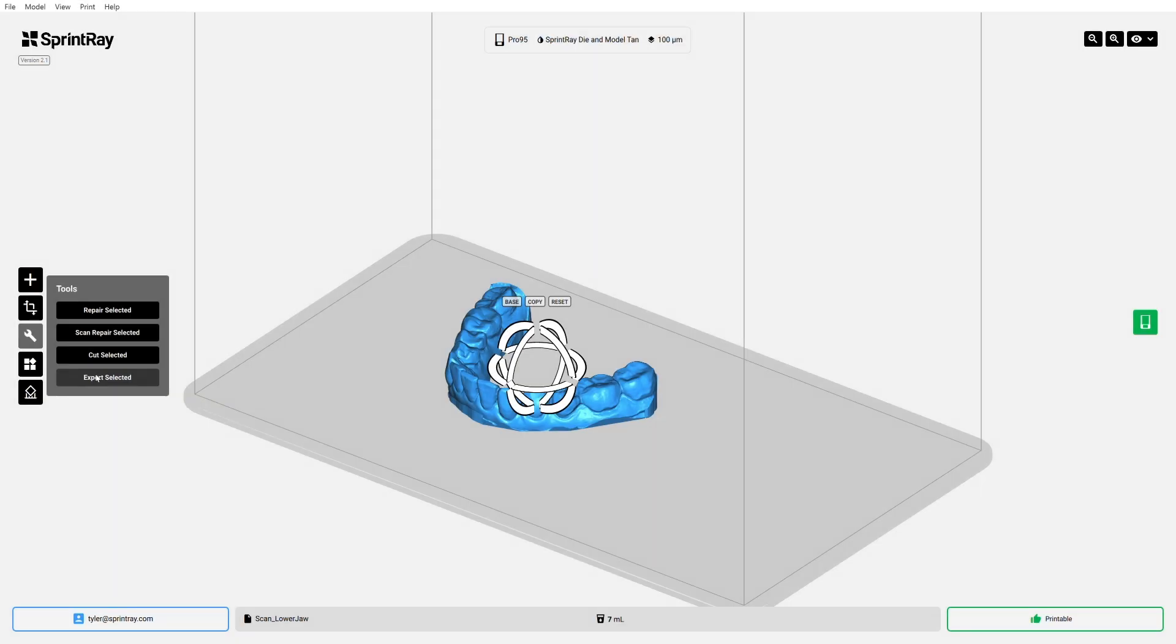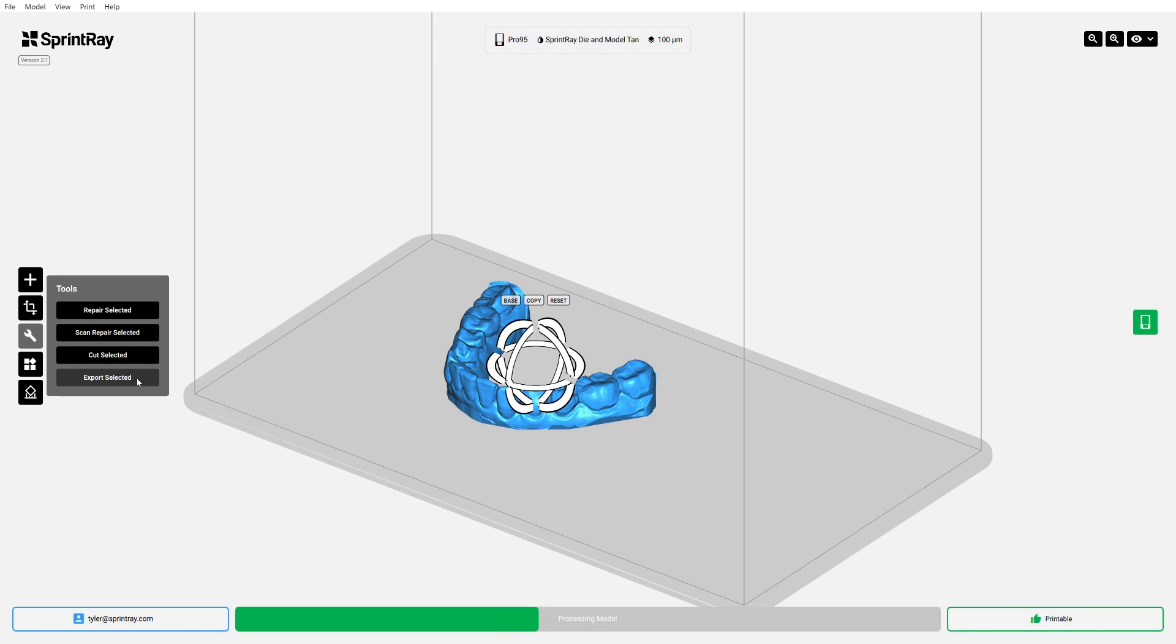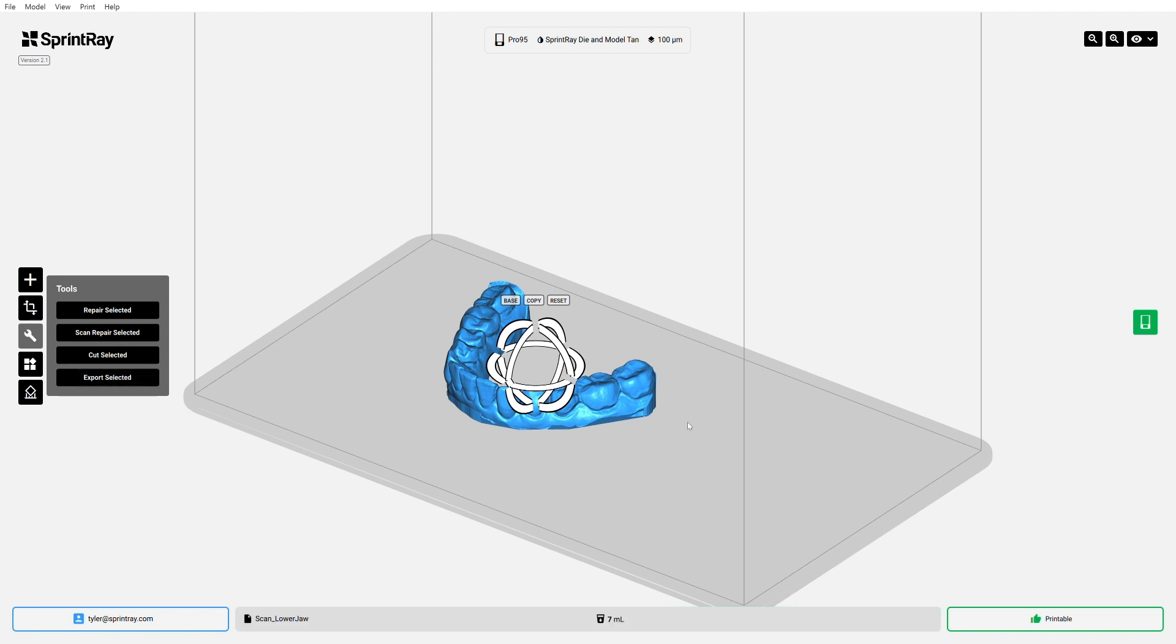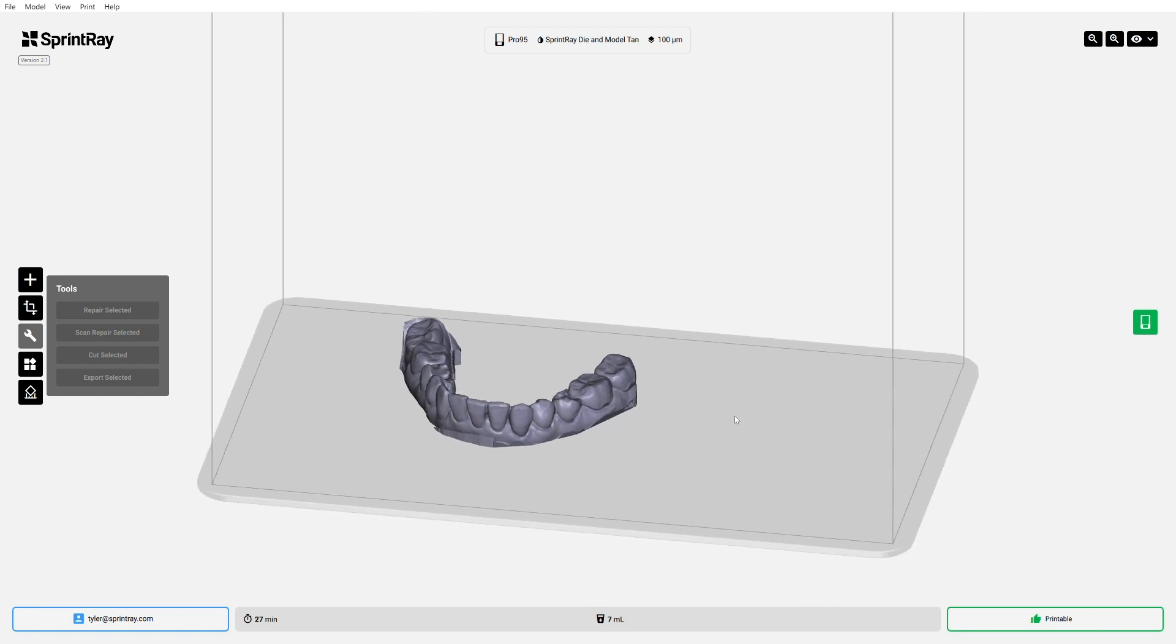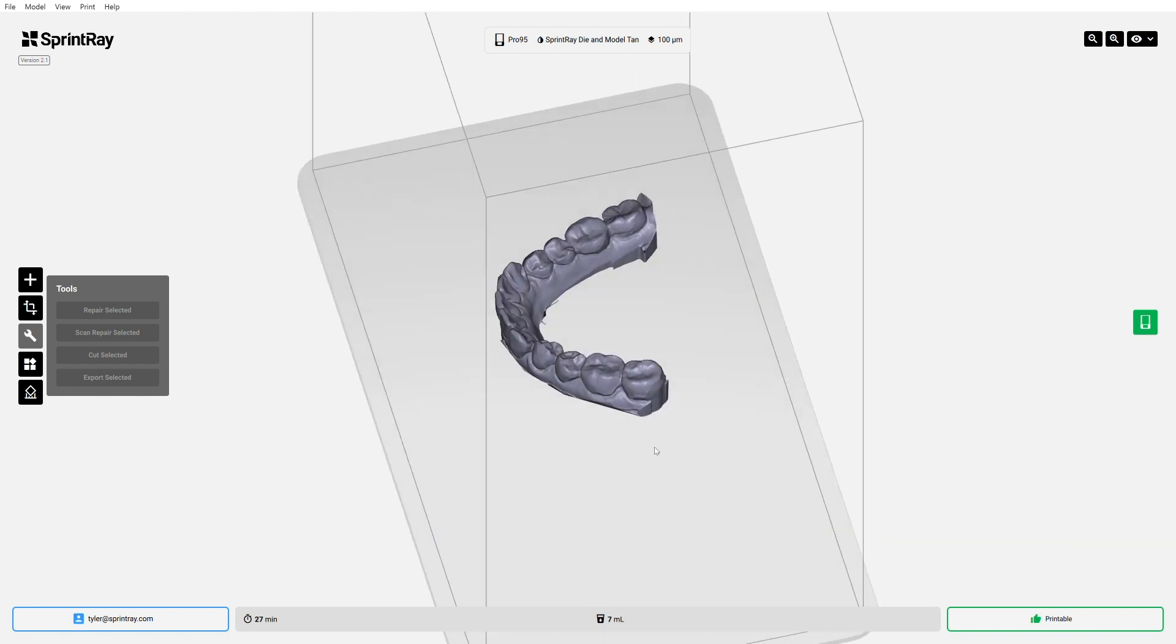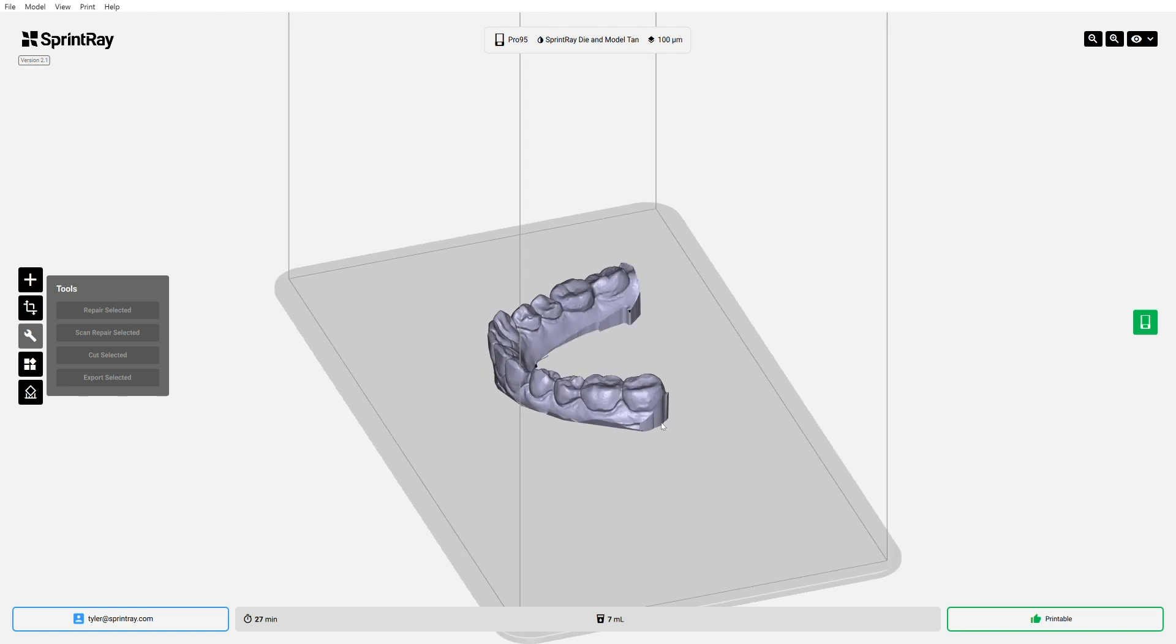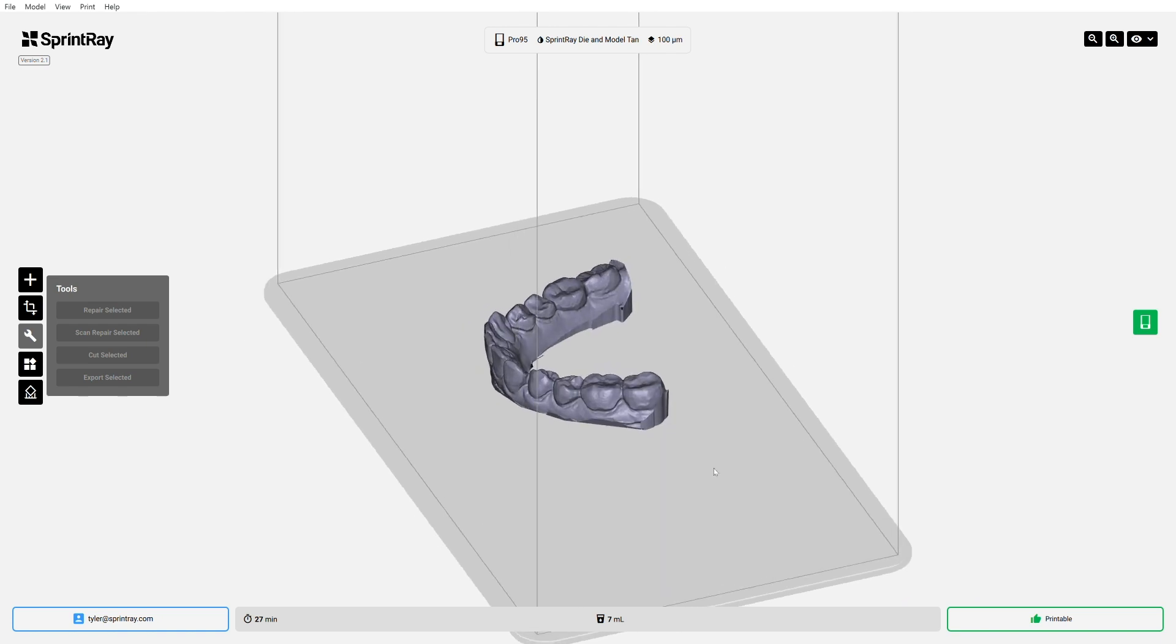So the last thing that we're going to do is now that we have edited our file and gotten it to a place that we like and that we're happy with, we're going to go ahead and actually export this model as an STL file. So I'm going to press the export selected button. What this is going to do is it's going to take all the changes that we've made. So the plain cut, the basing, and it's going to save them all as one essentially universal 3D printing file as an STL. This will allow us to pull it into another software, whether it's mesh mixer for more editing or a third party print prep software, because we want to use, let's say, a different printer to print this model than our Moonray or Sprintray Pro. That's what this allows us to do.